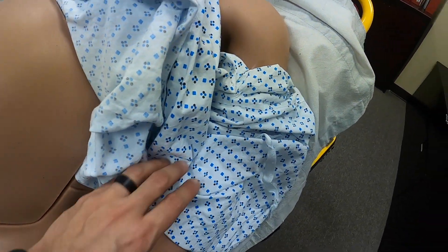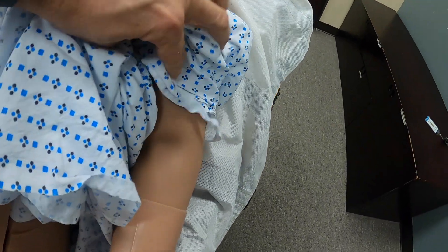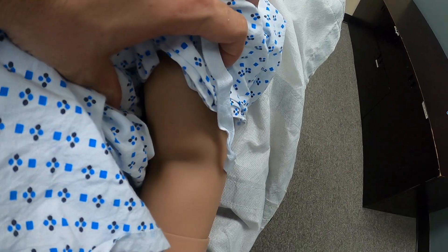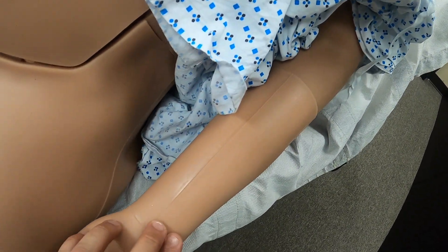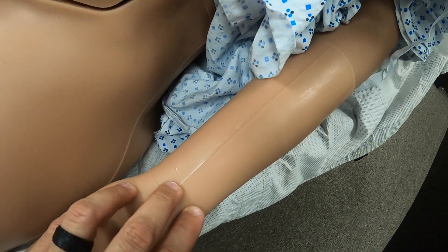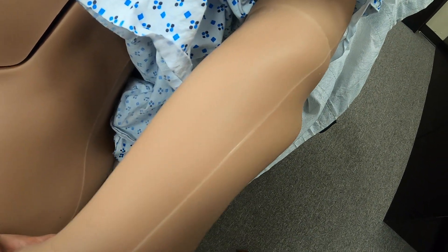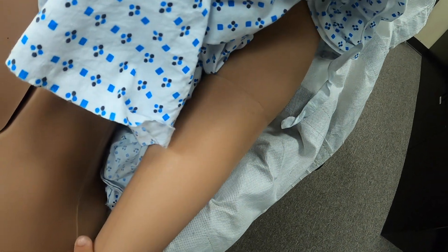Going down to the arms, blood pressures can be done with blood pressure sensors located in bilateral upper arms. Radial pulse points can be found on both sides, and IVs can also be placed in both arms.